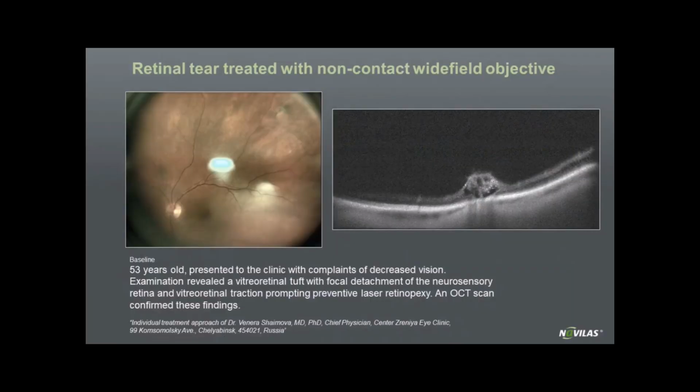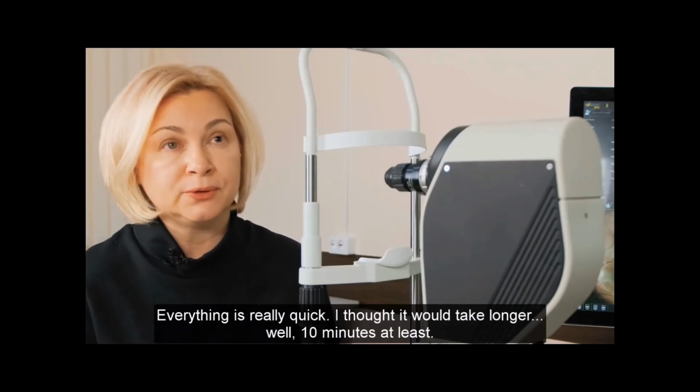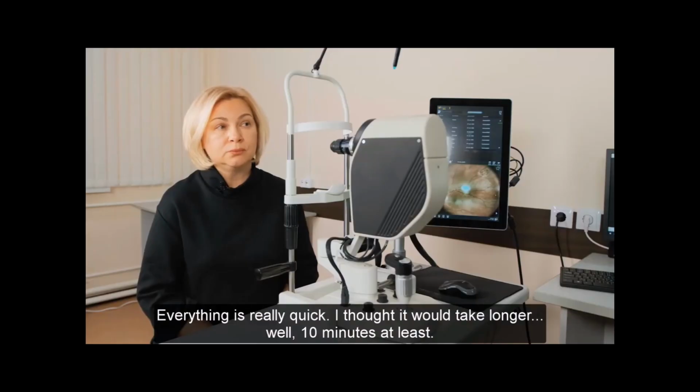Before the actual demonstration, I'd like to present you this clinical case, which nicely demonstrates the capabilities of Navilas non-contact optics. As you see, OCT imaging was performed before and after the treatment to ensure the treatment transparency. Patients prefer Navilas treatments in general due to less pain and discomfort, but non-contact treatments improve this further.